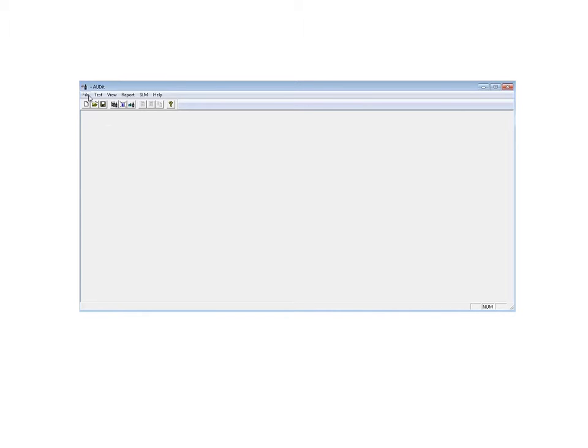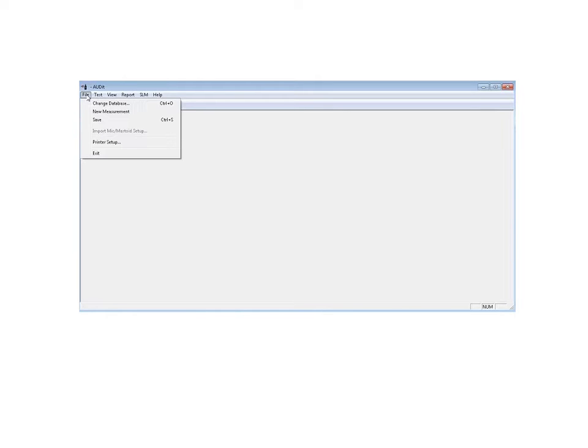There is data entered into the audit database. This is part of the startup and may be the most tedious part of using the software. You'll go in, create a new database and a new measurement, and save those items.